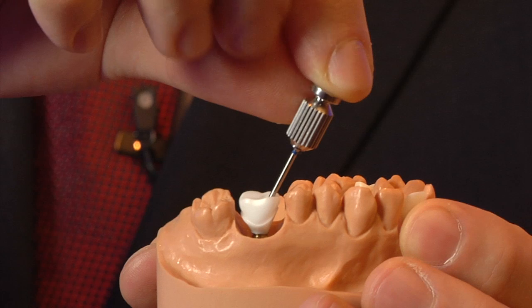Since the angulated screw channel is available for the conical connection in zirconia, that means our clinicians and laboratories have another fantastic opportunity to go for a screw-retained restoration. Being able to veneer porcelain very simply to the zirconia gives us the opportunity to get away from cement and some of the implications that can bring.